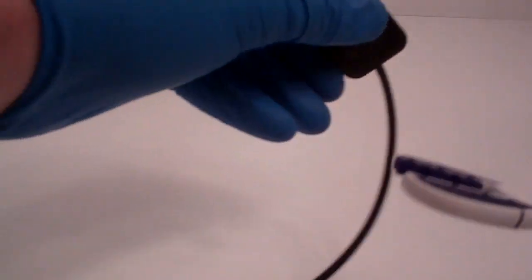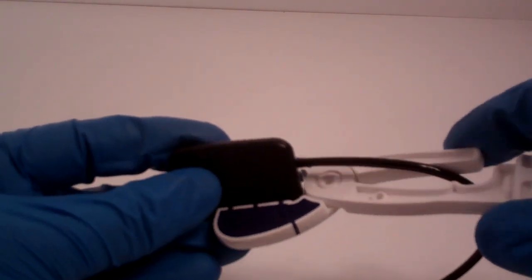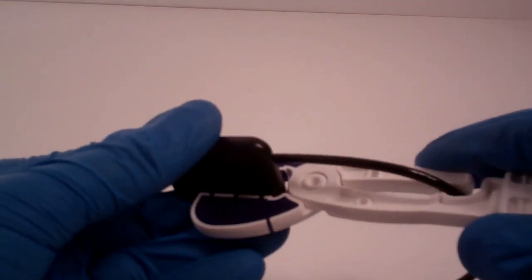The best way to load your sensor is to capture the cord in between the little arms there, just for your cord management. And you're gripping it just at the edge for periapical. I can just straighten it out a bit.